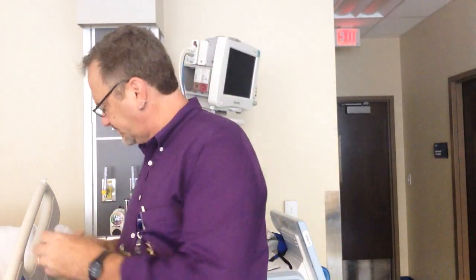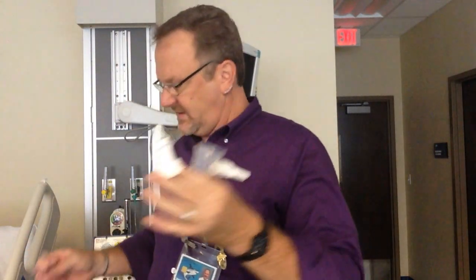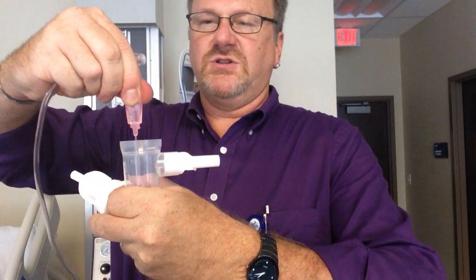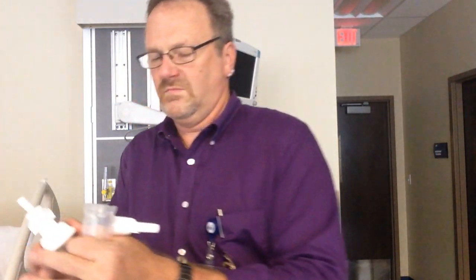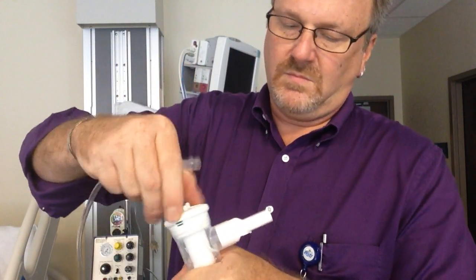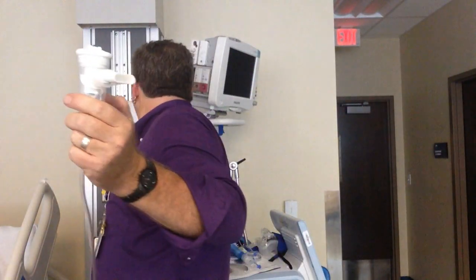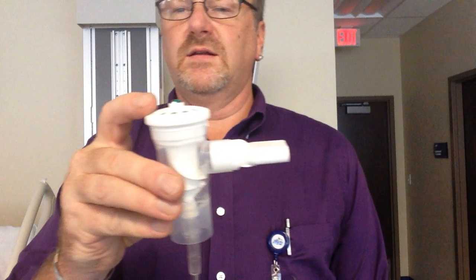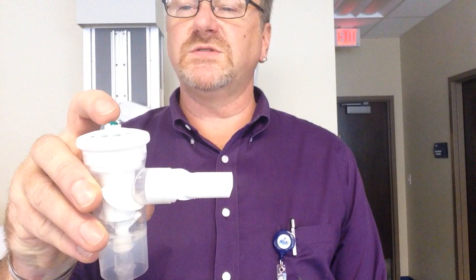So when we go to the Aero Eclipse, as you saw, I pulled it out like this. Squirt the medication in. Put that on. Go in. And I turn this up to 8. Now this is where you're going, but Dr. King, nothing's coming out. Well, no one's breathing in. It's on breath actuated. So when they breathe in, this little knob goes down.